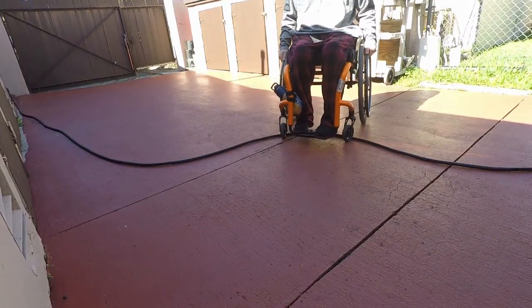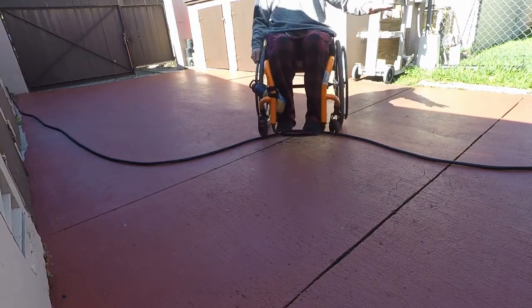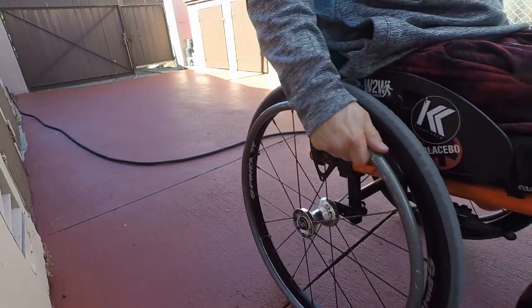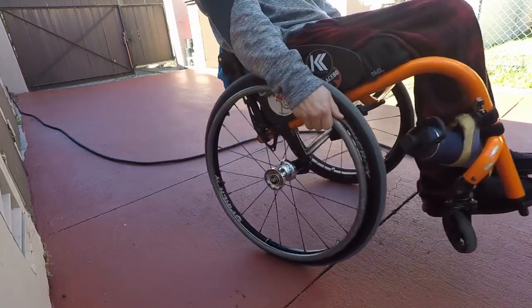See, they don't go over — not even backwards. But when I do it with one hand I lean back a little bit. When I do it with two hands I don't need to lean back as much because I have enough power to just go and do it.